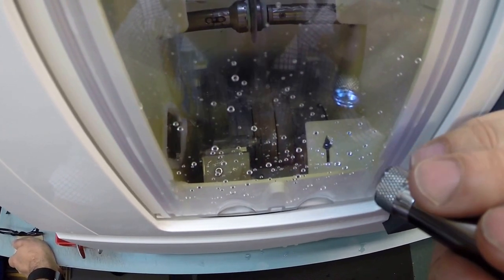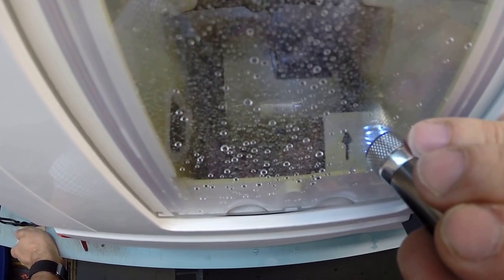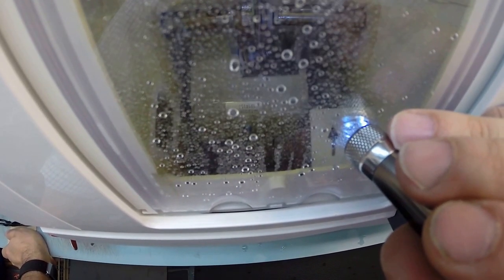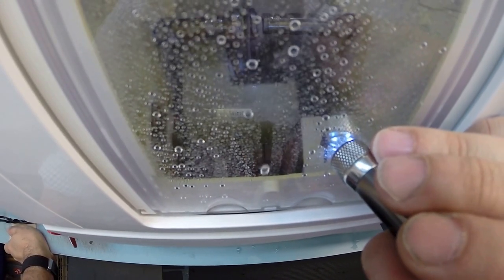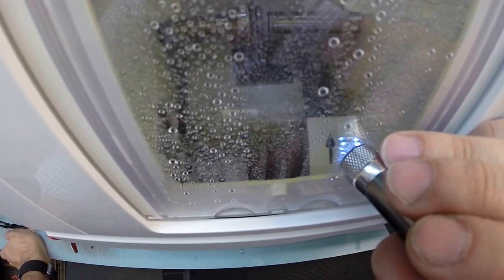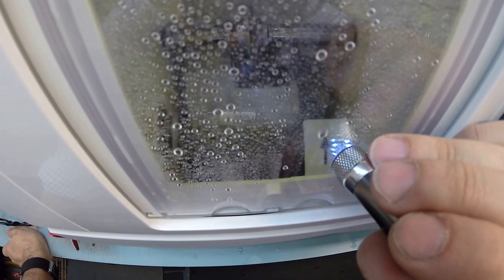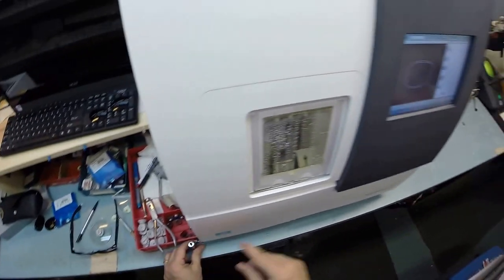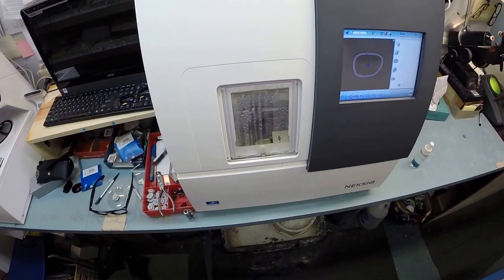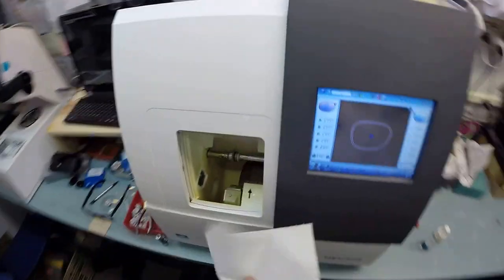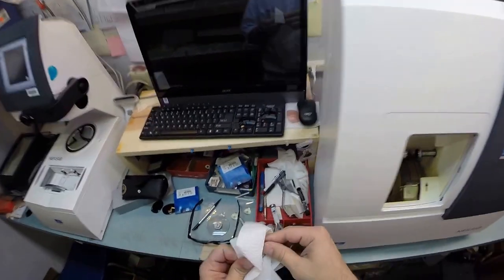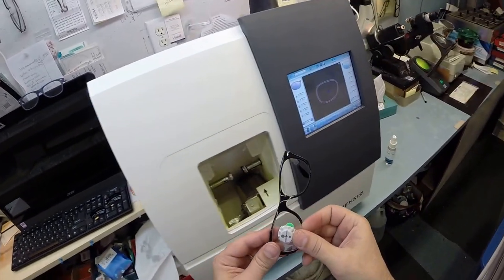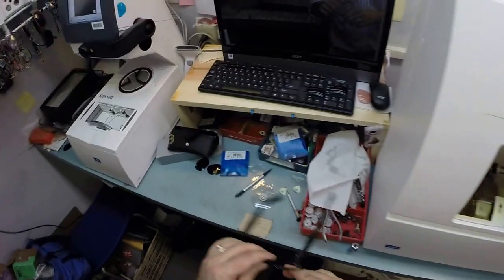Now in just a moment this arm, a lever I guess is the technical term, is going to move forward. On that wheel you see a little wheel that looks like a grinding wheel on a dremel tool. That is putting the safety bevel, just smoothing out any rough edges left over from the cutting surface. It is doing it onto the concave surface of the lens which is the rear surface closest to your face. In just a moment this door will open. Let's open that up, dry everything off, and I'm going to tuck your lens in at the outside corner using my thumbs. I press down at the nose and it snaps right in.